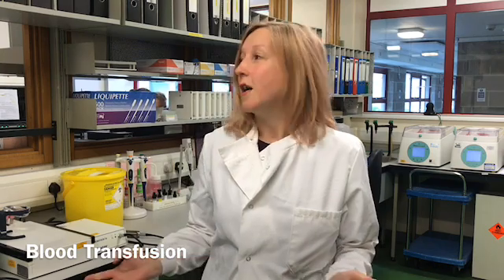Hello, my name is Tamsyn Hayden, and I'm a biomedical scientist and section manager in blood transfusion. This is our blood transfusion laboratory. Here we provide blood products for the patients in the hospital. We work very closely with the medical teams to make sure we can provide the correct blood for the patients. We test patients' blood samples for their group and see if they've got any antibodies, and I can show you where our blood fridge is.